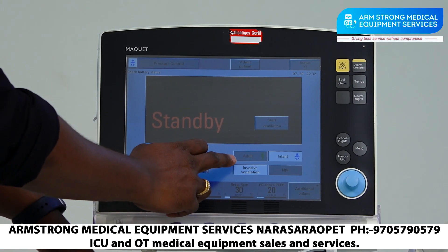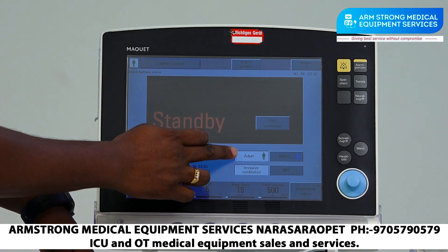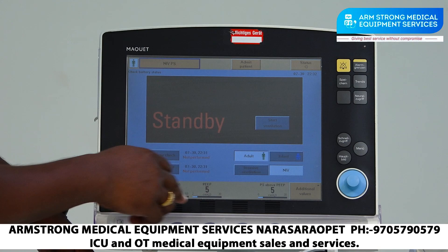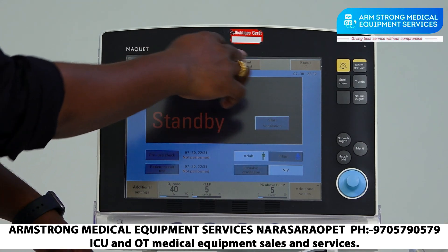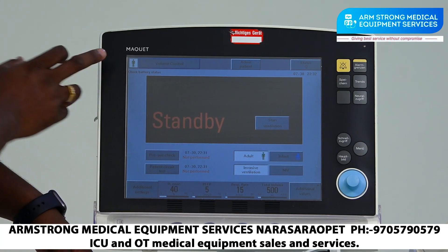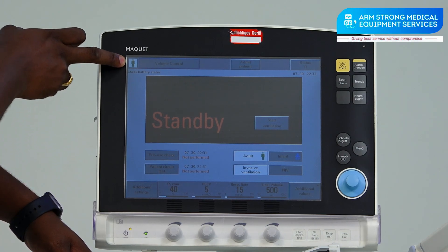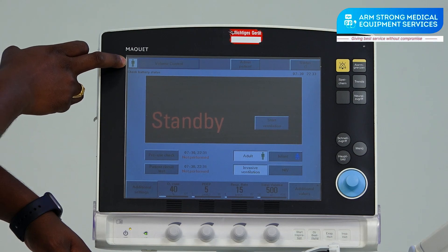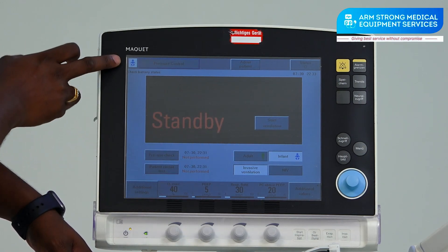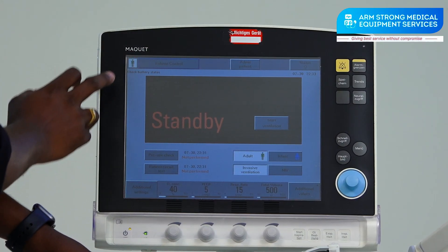Here we have options for Adult, Infant, Invasive, and Non-Invasive. In adult non-invasive mode the screen will change accordingly. You can notice the mode from the display. During ventilation you can also check whether it is in Adult or Infant mode by looking at the human symbol icon shown on the display.